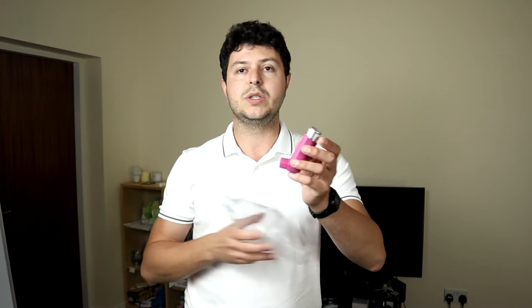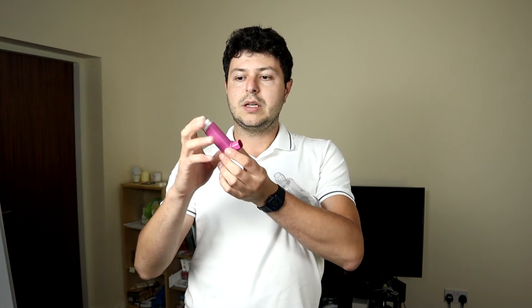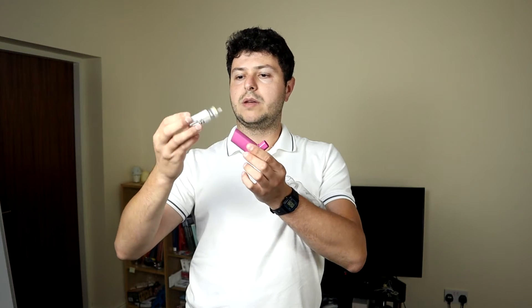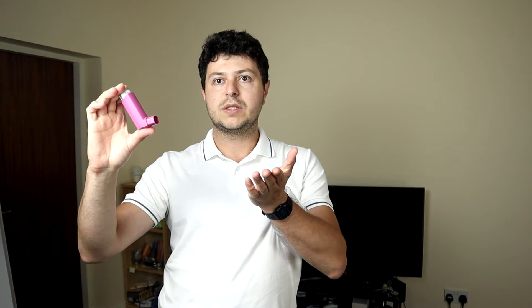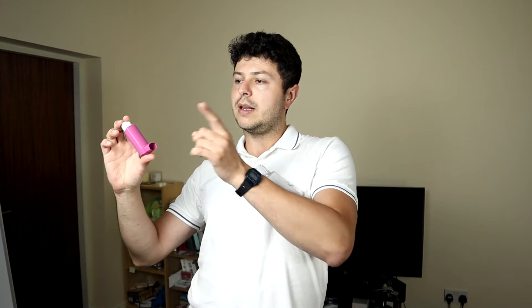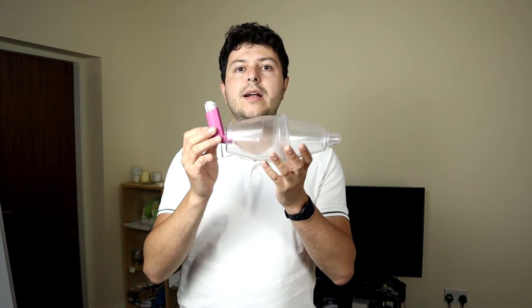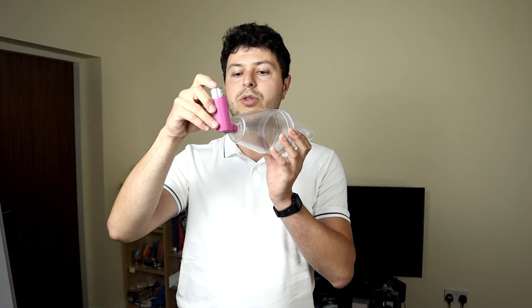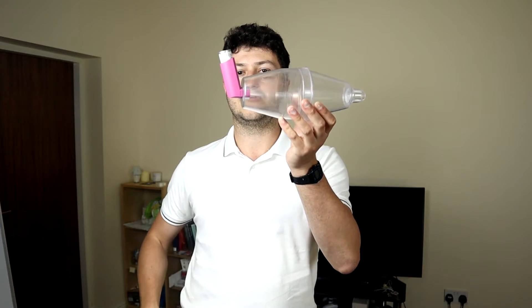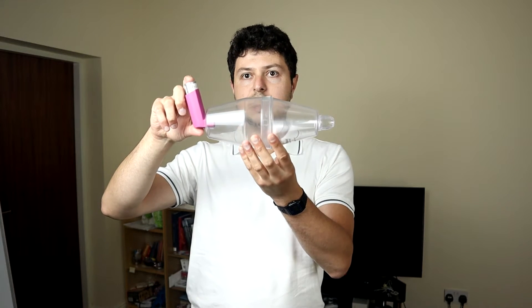With these spacers, you would use some kind of inhaler that produces a mist on its own — it contains a pressurized device, a pressurized capsule inside, and when you press on it, it releases a plume. As you can see, it produces a plume of mist. Now when I connect the inhaler to the spacer, it needs to fit. You can tell if your inhaler works with this spacer by whether it fits in the end hole — the mouthpiece should connect firmly and not fall out. That means this spacer is compatible with this type of inhaler, and most pressurized inhalers will work like this.